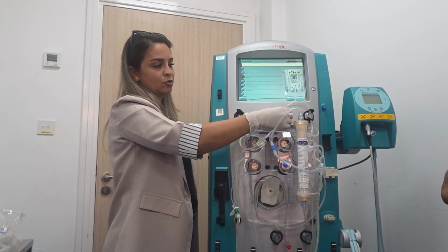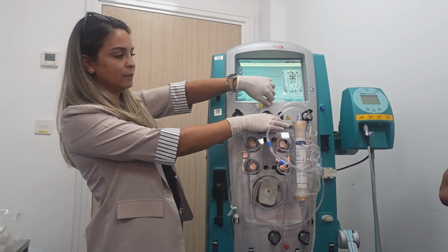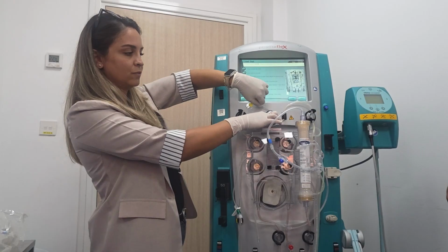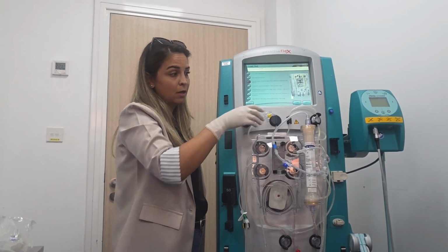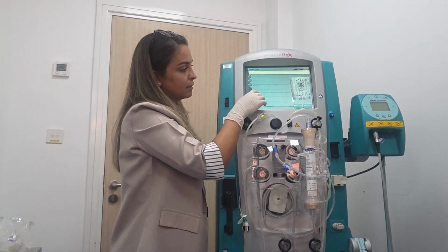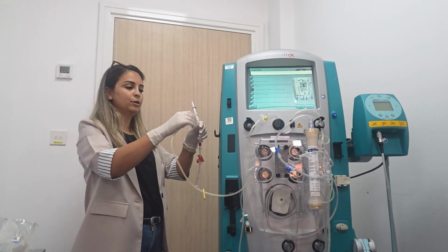Exactly. So this is the discharge ring. And then the blood leak detector line, we push it inside, we pull up and down to make sure it is fixed well. Okay, always ensure this U line is not too long and not too short. Okay, then temporarily hang the access effluent Y line on the priming hook here.